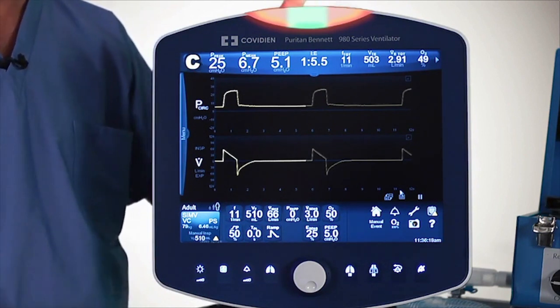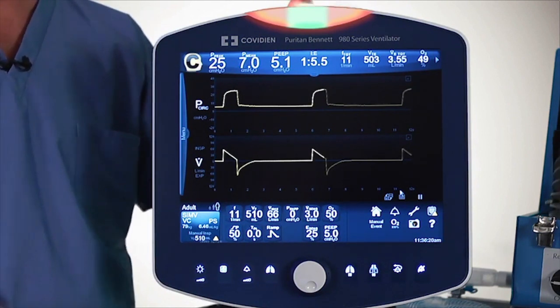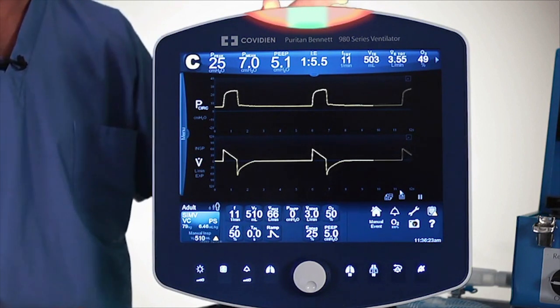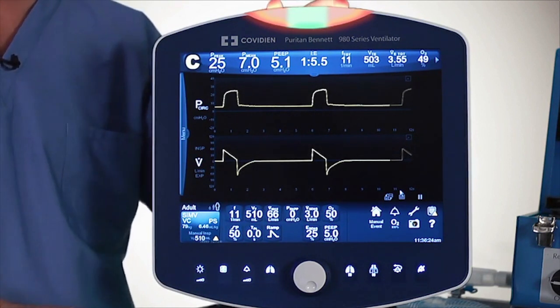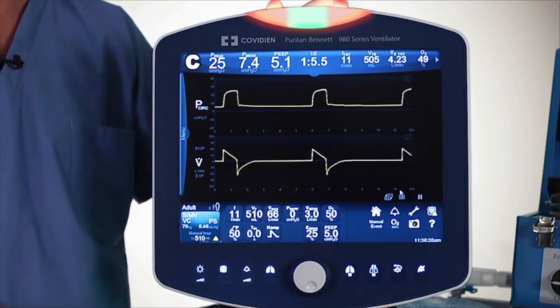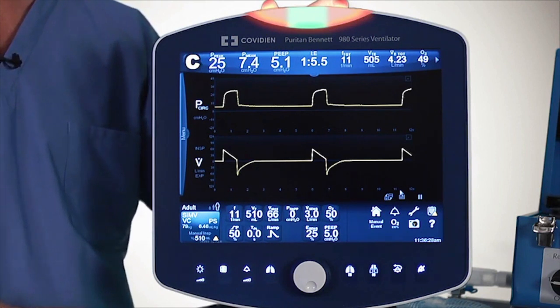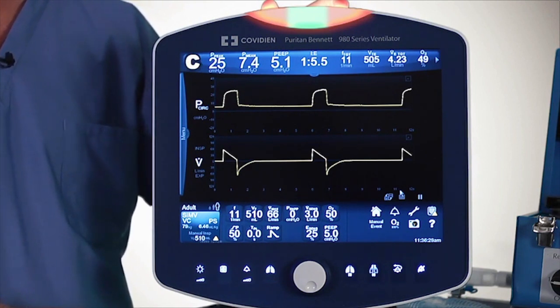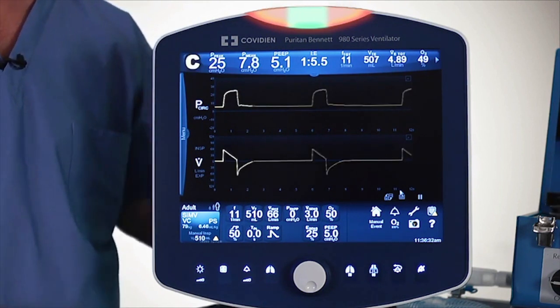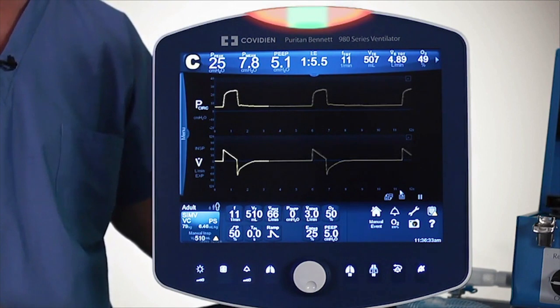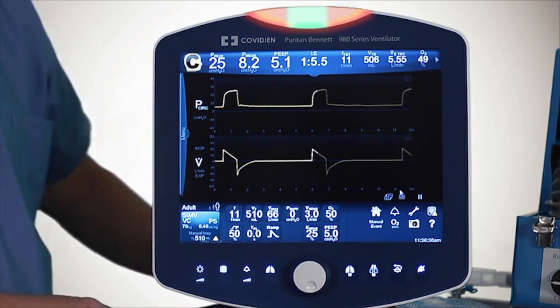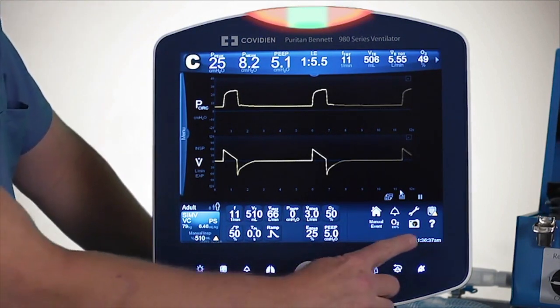After reset, you get an interesting appearance on the top of the display. This green area means the condition is currently perfectly fine, but it lets you know that an alarm did go off and you may want to check the alarm log to see what it was. That would be the next place I'll go — the alarm log.